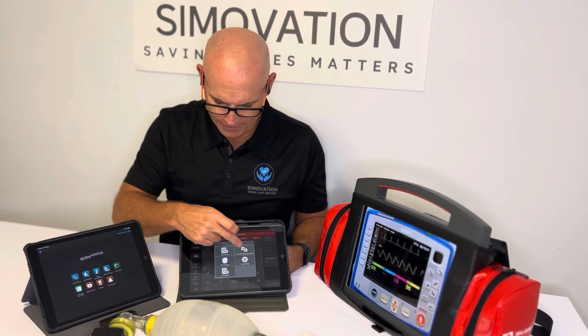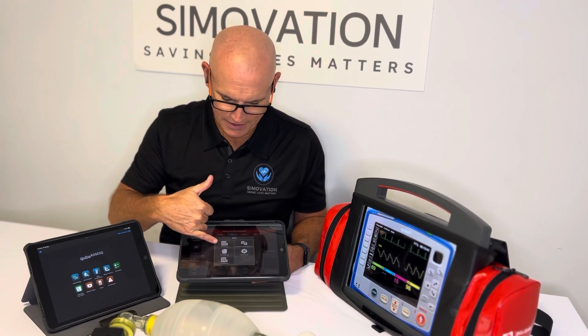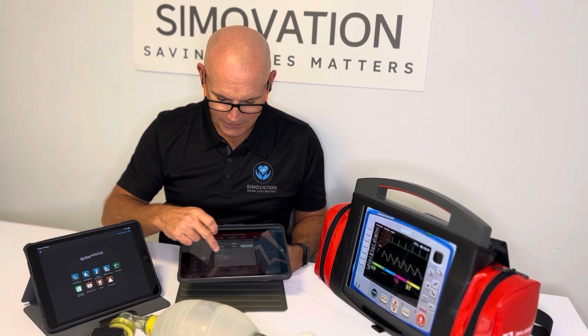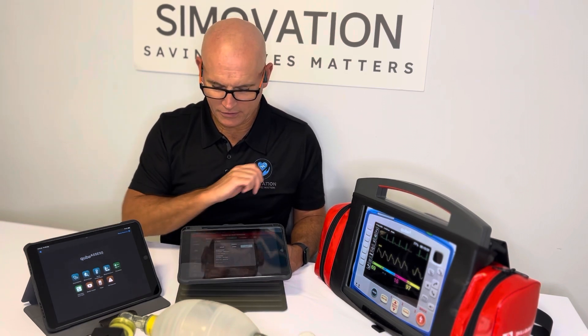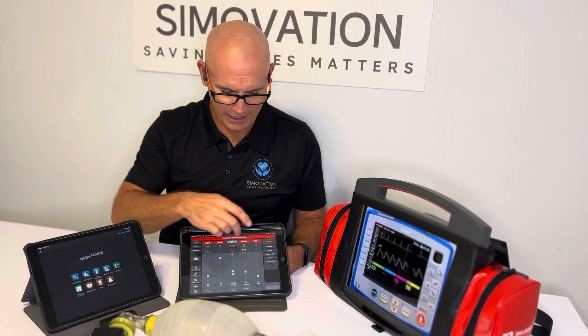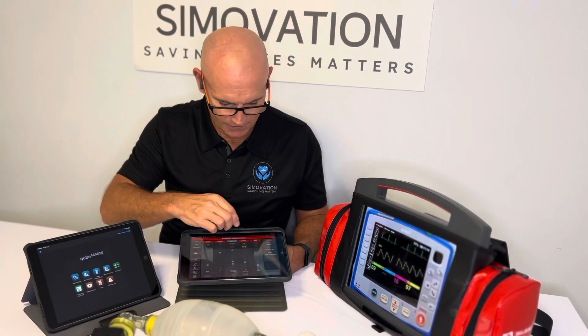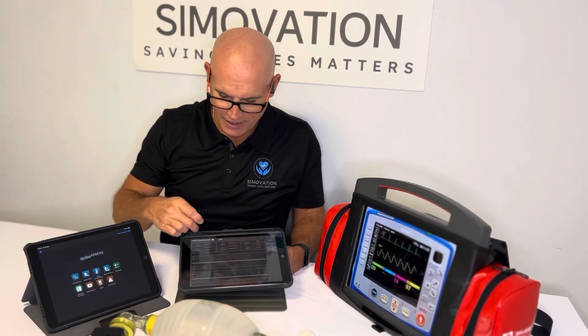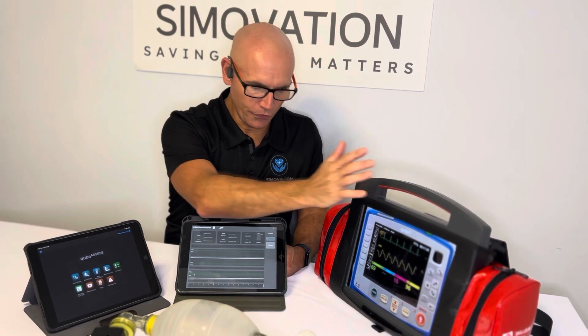If I go down to Menu, you'll notice a couple of different icons, but one important one is the training log. At the end of every session, if you end the scenario, it will save a log automatically. There's also a CPR category option where you can pre-select whether it's for infant, child, or adult. That can be done when building the scenario, but if you want to use the system on the fly you can — just start a scenario and then select infant, for example. You also have your CPR data here, so when you're using the CPR sensor in live view on the instructor tablet, you'll get that information, just as you would with a Zoll X, CorPulse, or LifePak.